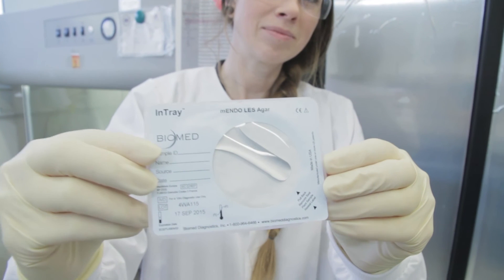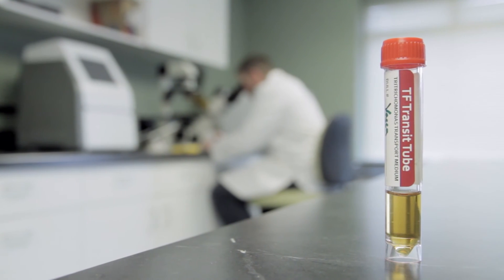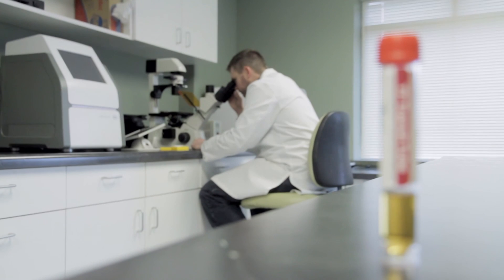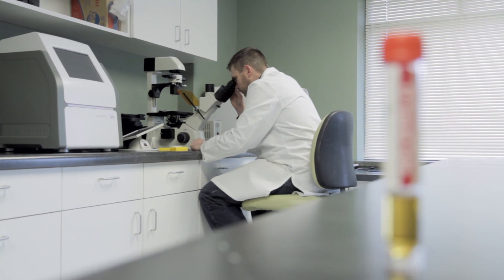The Biomed in-tray, in-pouch, and transit tube diagnostic devices are designed to make your job easier and your diagnostic results more predictable.